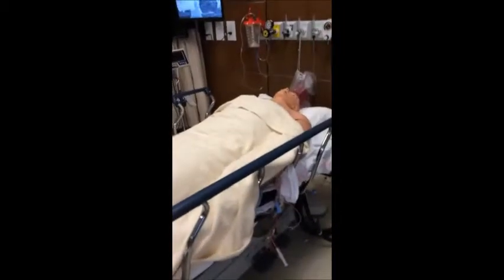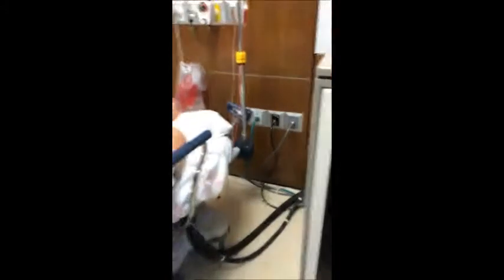So after those tanks are on, after all the gases are on, we wander over here, and here's Stan, our $250,000 mannequin. This rack is essentially his lungs. So this rocker switch at the bottom turns it on. Then we walk into the control room.